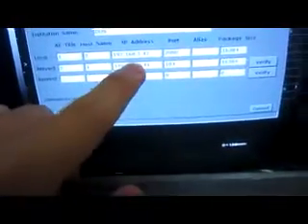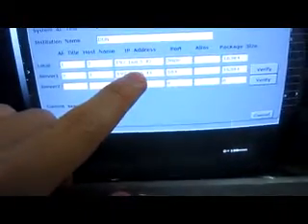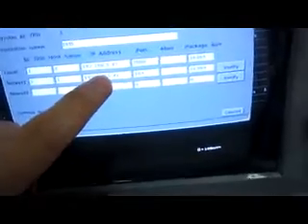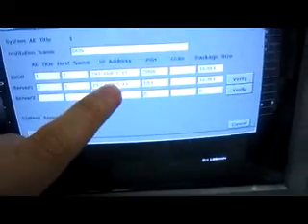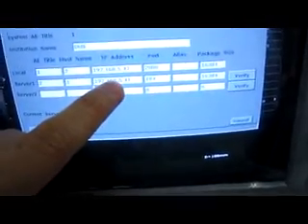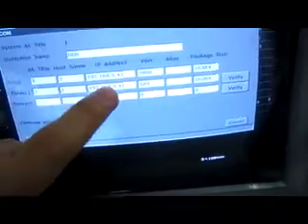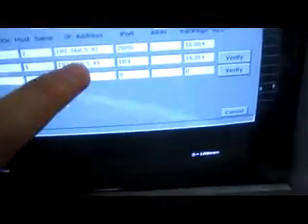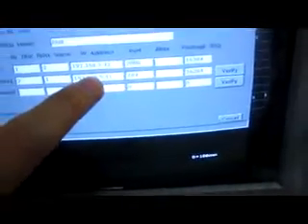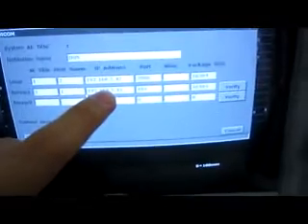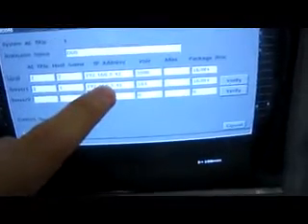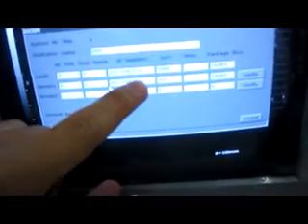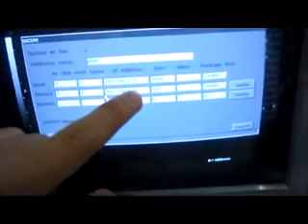The Server IP should be the same as the address on the server or the computer. Maybe it's just a single computer which installs the EDAN's and DICOM software, or maybe it's the DICOM software on the server of the hospital or clinics. This address must be the same as the one on the server.